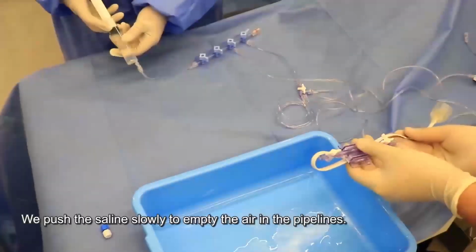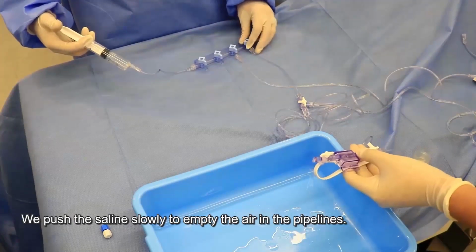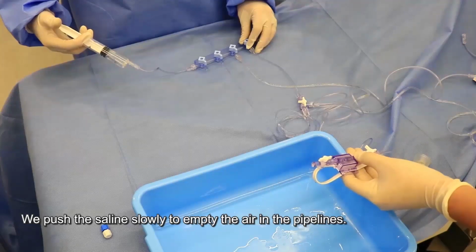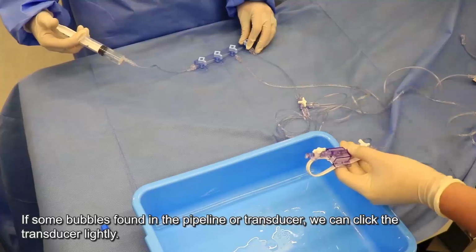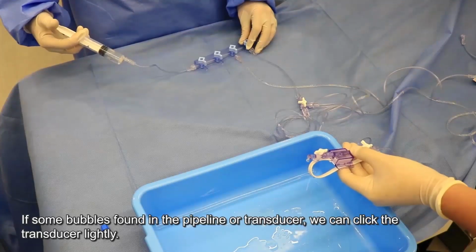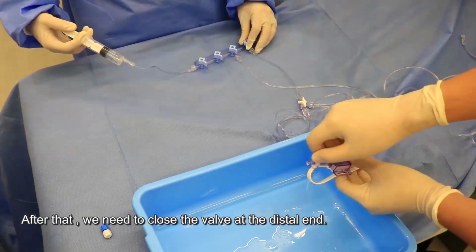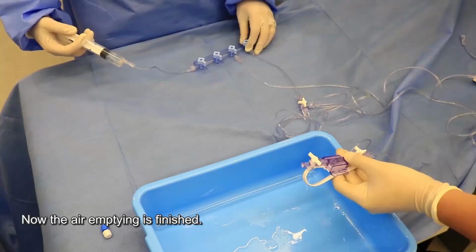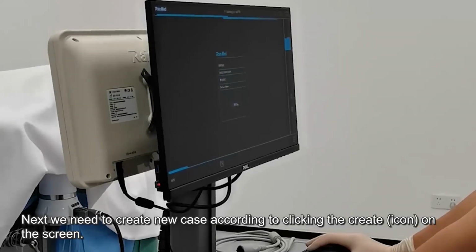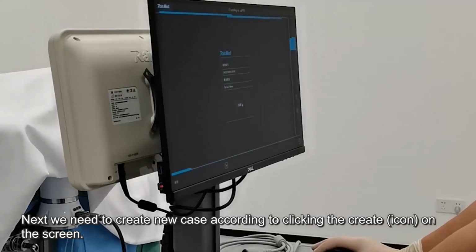Okay, we push the saline slowly to empty the air in the channels. If we find there are some bubbles, we can click the transducer lightly. Okay, after that, we need to close the valve at the distal end. Now the air emptying is finished. Okay, next we need to create a new case. Just click the create on the screen.